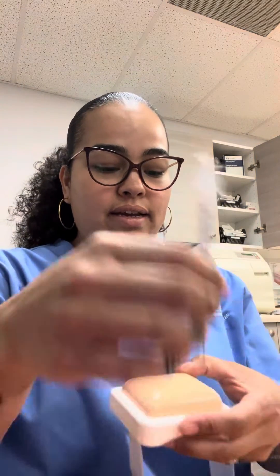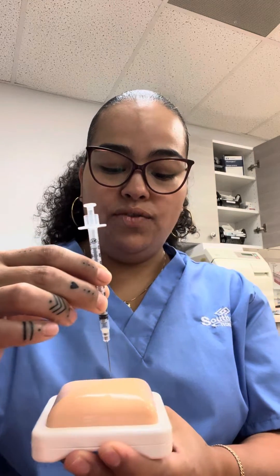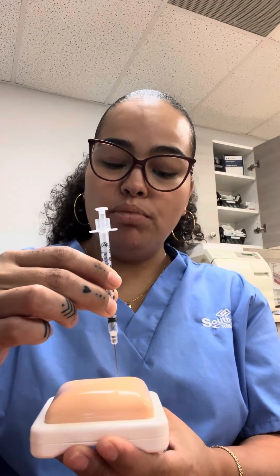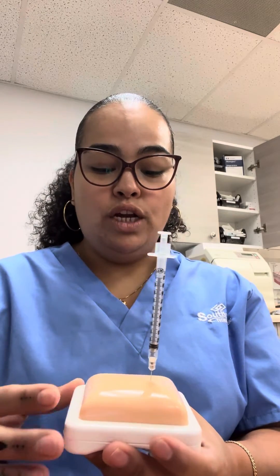I'm going to show you the different angles that a medication can be administered. The 90-degree angle is for your intramuscular injections, either by the Z-Track method or by a simple intramuscular injection.